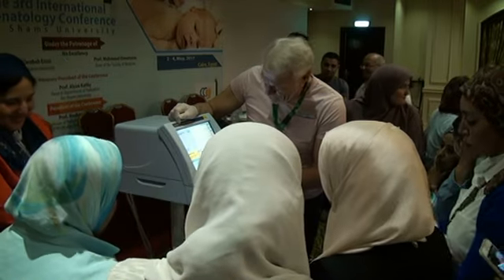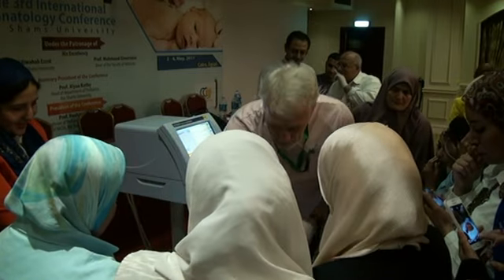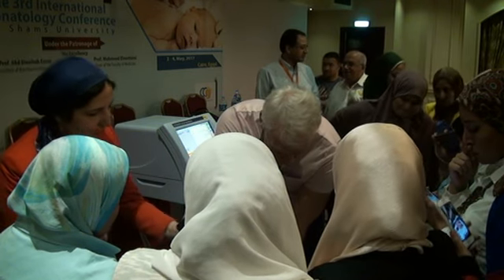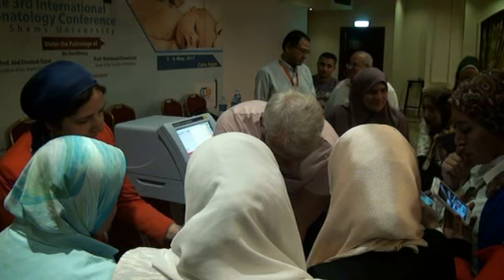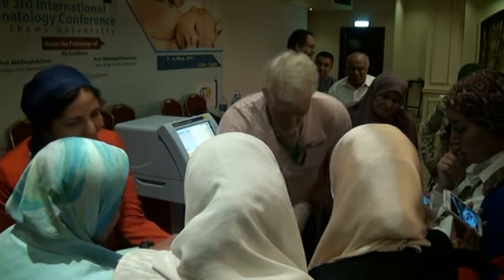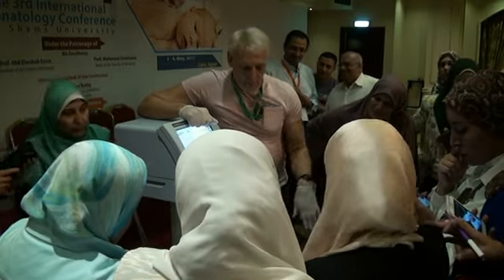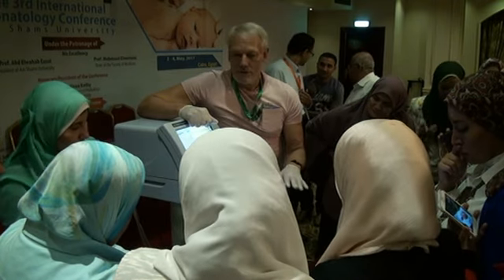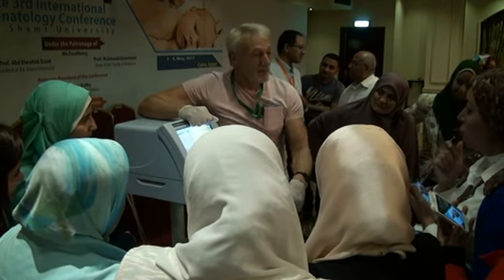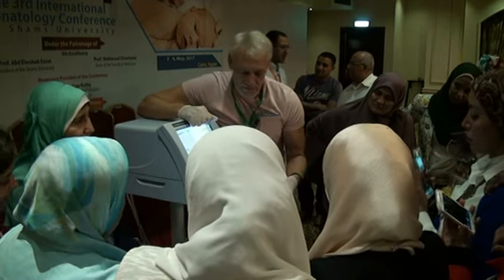Let's see what this baby does, and see if it'll recruit a bit there. So we're doing a bit of suction. The lungs collapse. And we reconnect, and just see how long that takes. I just have to tell you this is quick because it's a nice fresh lung. If I had this lung a month later, it'll be slower, and a month later after that it'll be slower. So as the lung gets a bit old, it's preserved.